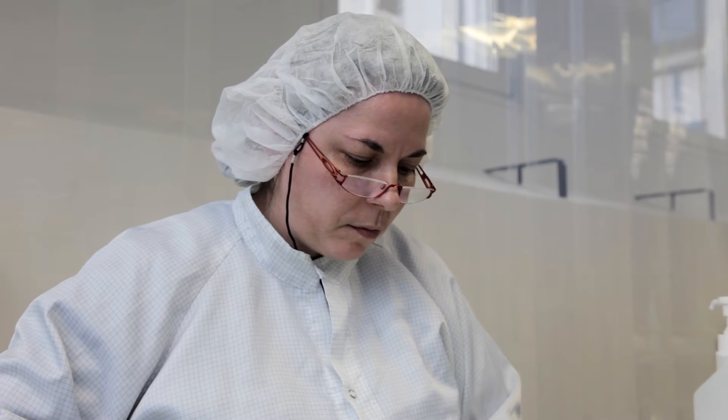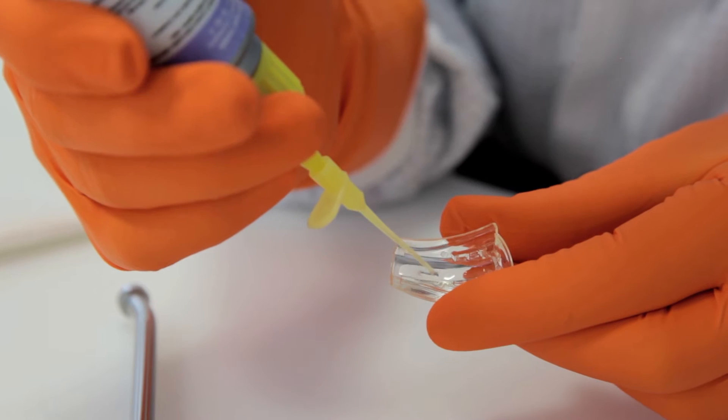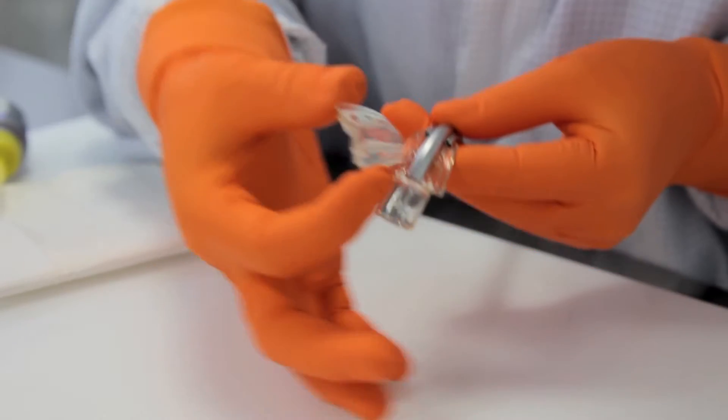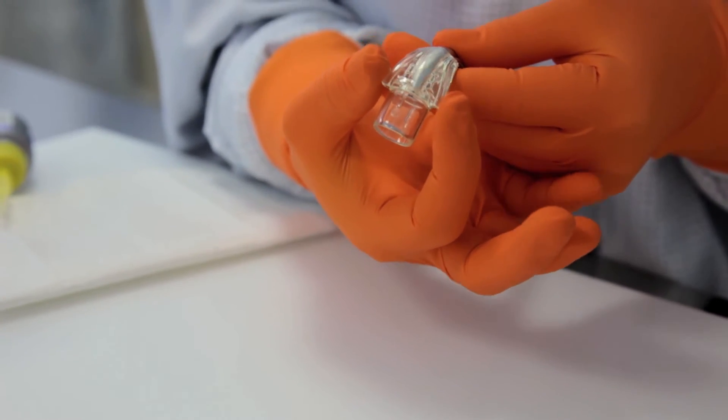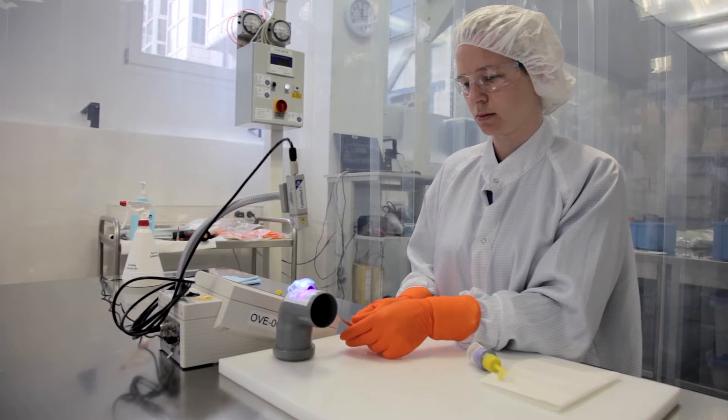Ovesco Endoscopy AG, based in Tübingen and winner of the German Hidden Champion Award, provides devices for the types of medical procedures which most people prefer not to think about.